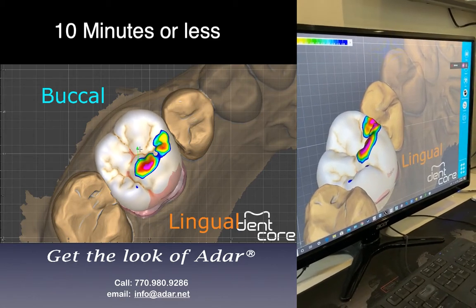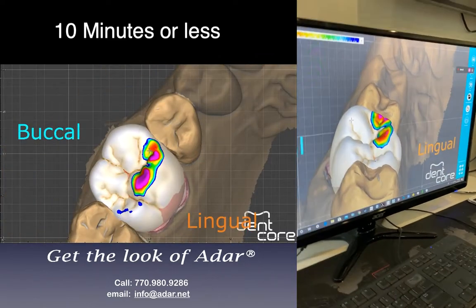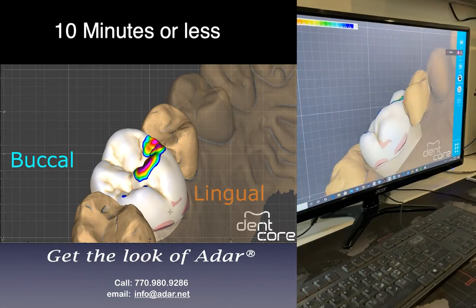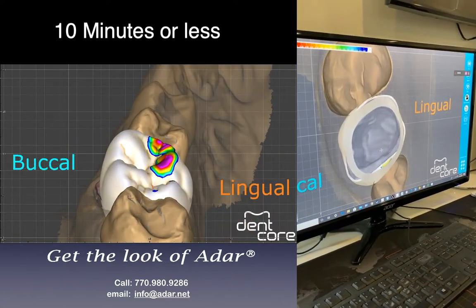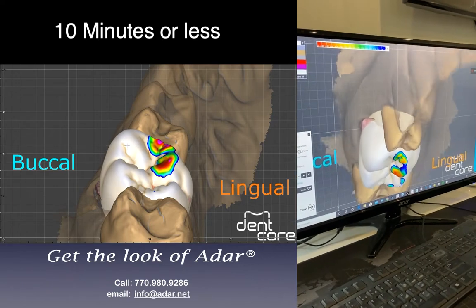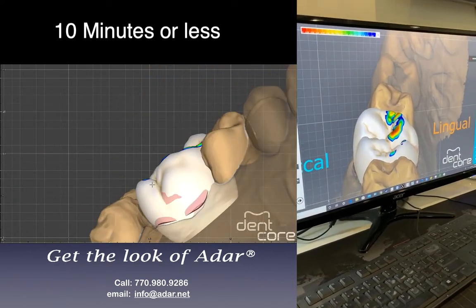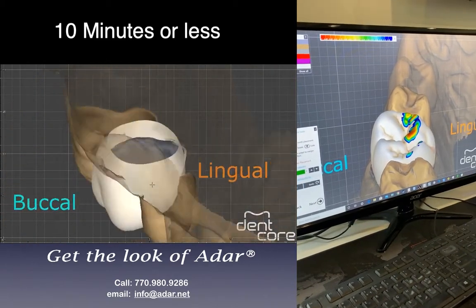The pink is minimum thickness, so whatever you see pink is minimum thickness. Cody wants to join me — he wants to do exocad. That's my little doggie, he's so smart, he likes to see everything I do. I'm going to keep that area and flatten it because you see the anatomy doesn't exist there on the neighboring teeth. So we'll go next.